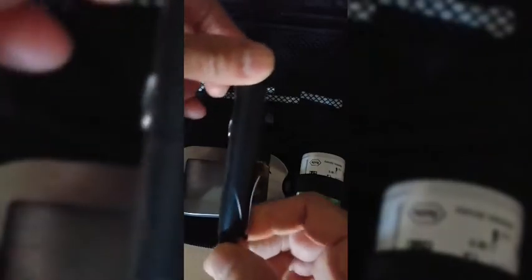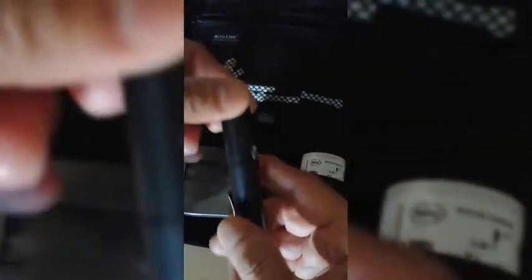So, unang-una, sabihin ko sa inyo kung ano ito — ito ay ang glucometer. Dito natin makikita yung result ng blood sugar natin. And this is the lancet device. It's like a pen. There's a number — it depends on the thickness of the patient's hand. Kung medyo makapal, ilalagay mo sa number 4 or 5. Usually, I am putting it in number 4.